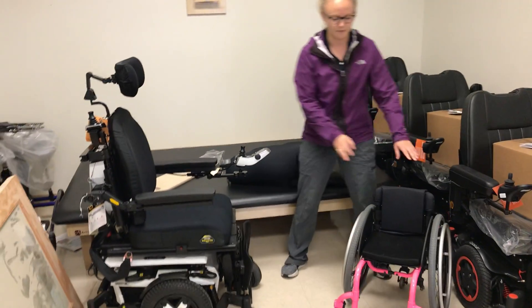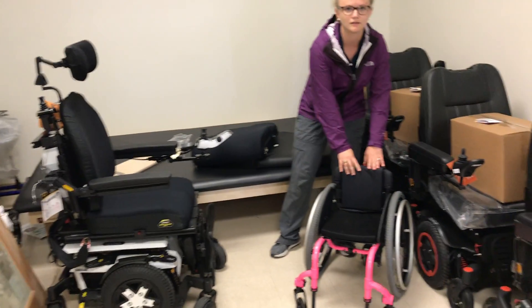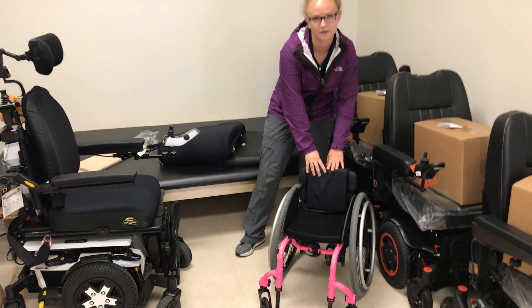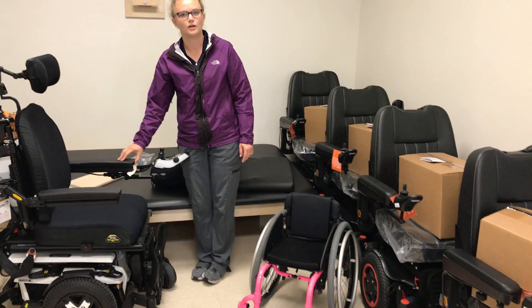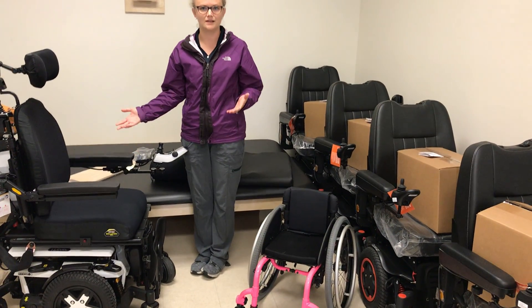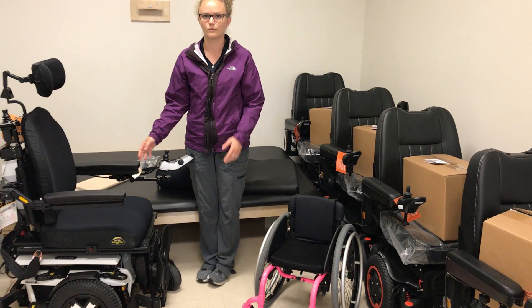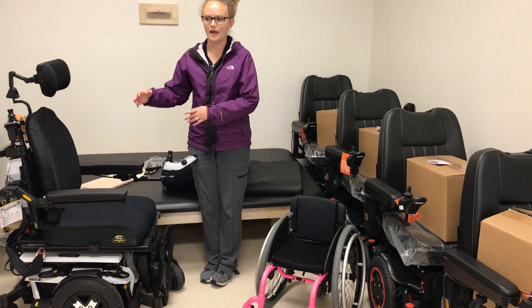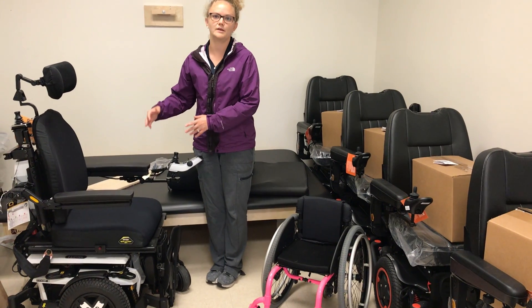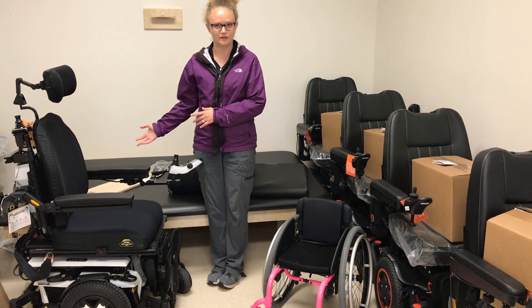In a manual chair, the seat-to-floor height is fixed. However, in a power chair, you can add a seat height elevator, which allows the user to choose at which height they want to be for each different activity.